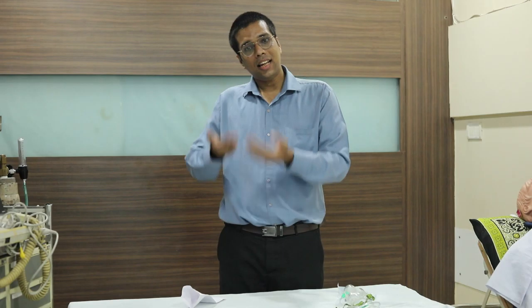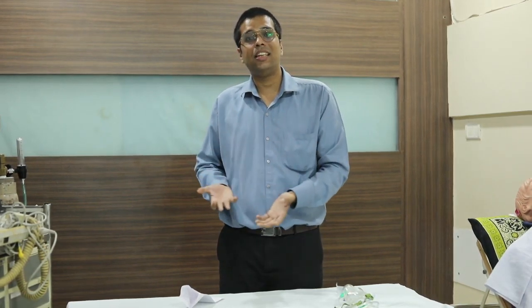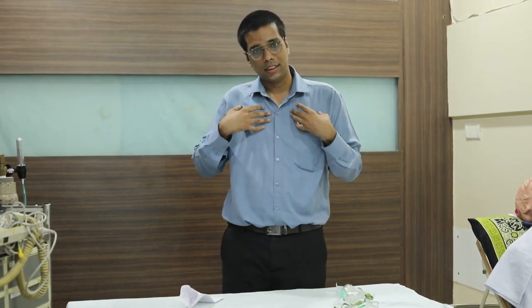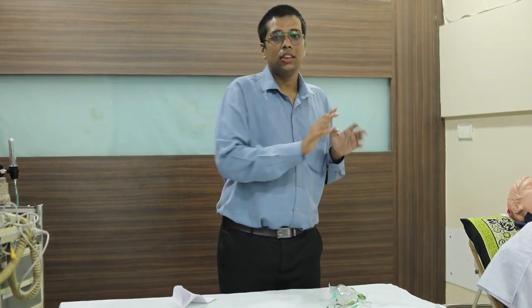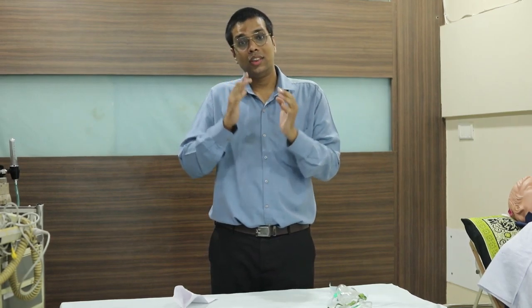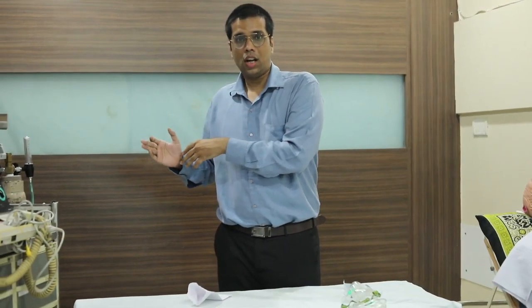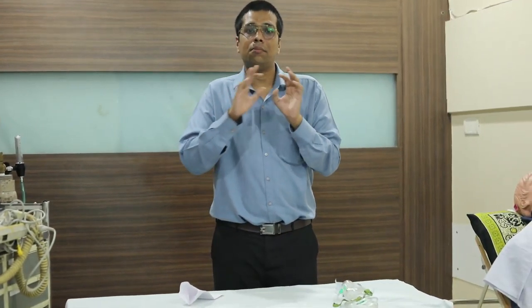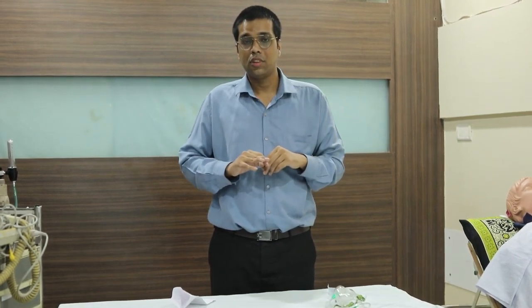So when I inhale again, I am basically breathing my own gas. When we talk about a non-rebreathing mask, I am not going to inhale my own gas. That is non-rebreathing. I hope that makes it clear about the rebreathing and non-rebreathing concept.